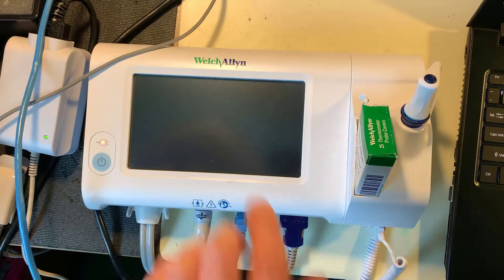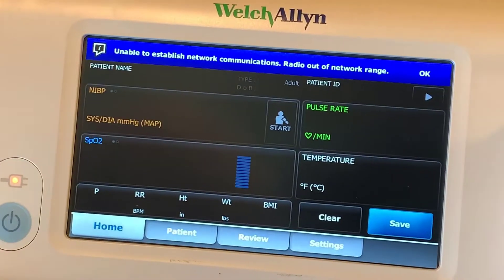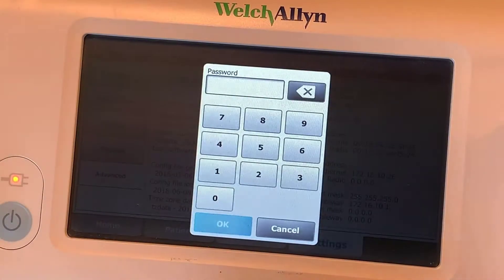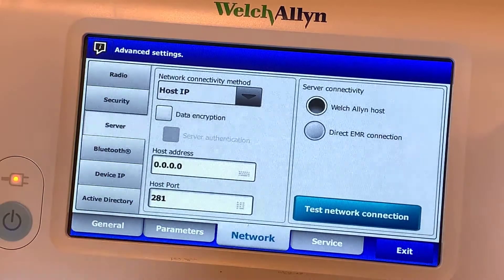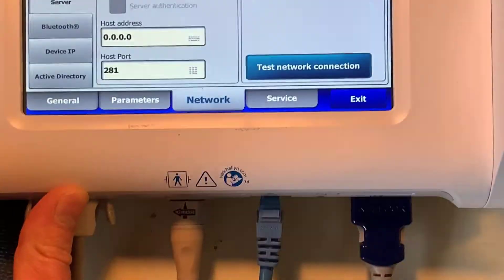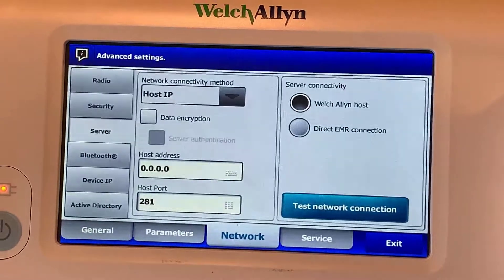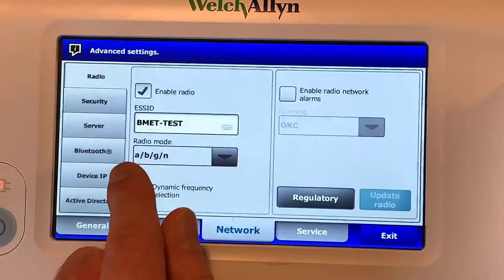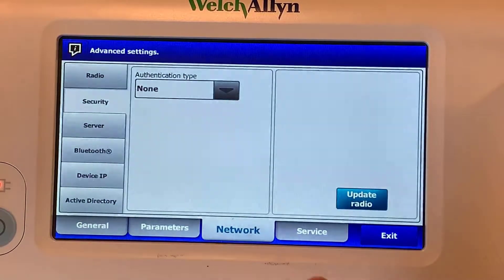So we're going to go ahead and enter that in on the Welch Allyn. On the Welch Allyn here, go into settings and then advanced. I'm going to type in the advanced settings code. Click on the network tab here and go to server. It's good to keep in mind right now I'm plugged in for the Welch Allyn to the same network as my laptop, so I don't need to worry about configuring wireless. But if you're going to do wireless, you would do that through the radio option here and then later on through the settings where you choose your authentication type to match your access point.